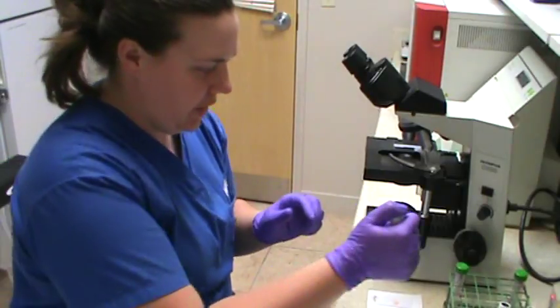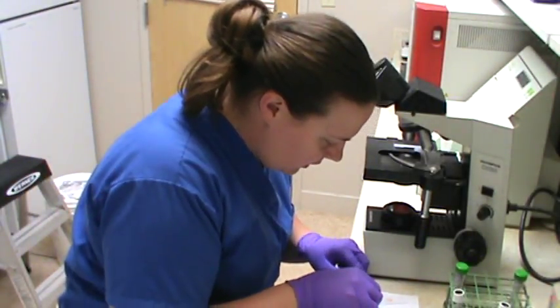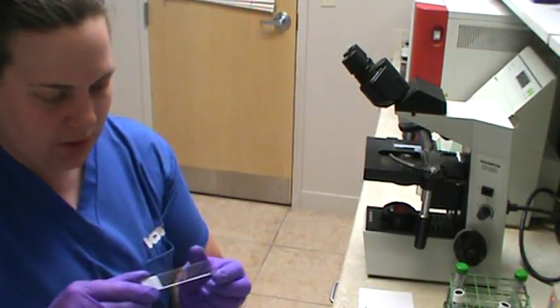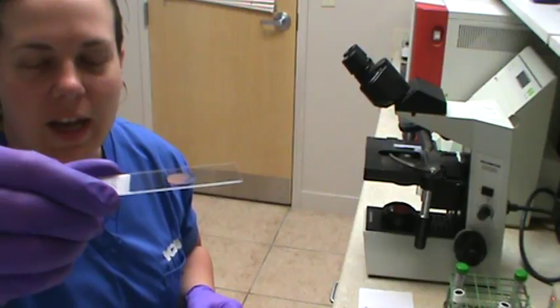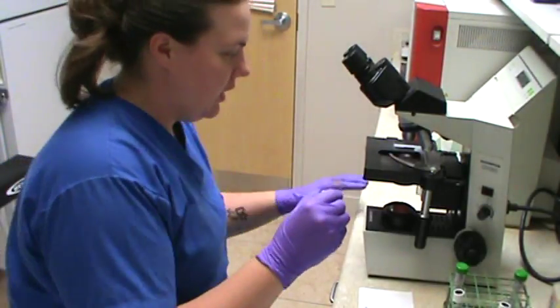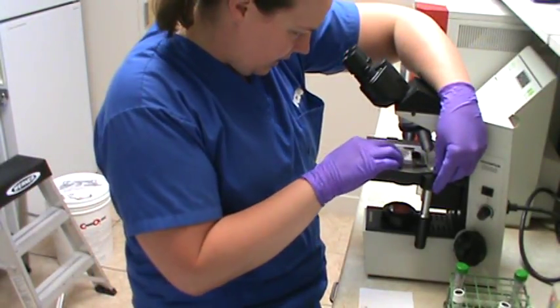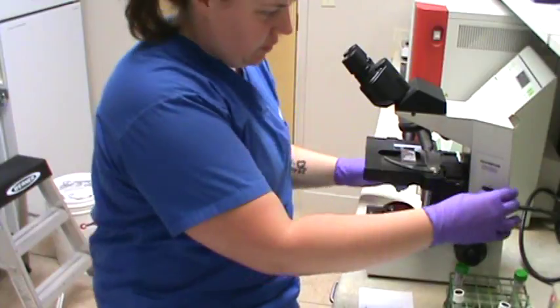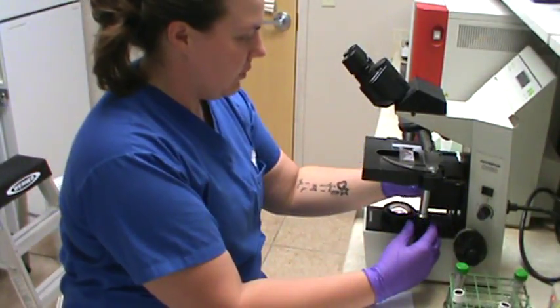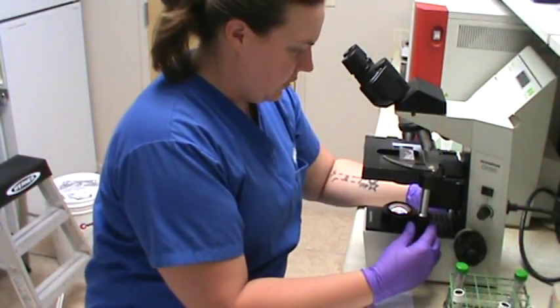Okay, so that was our major tube. I threw my pipette in the garbage. And again, I put a drop on the major slide. Even looking at it macroscopically, still not seeing any agglutination. So we're just going to go ahead, put this on our slide. And we're going to take a look. We're going to put on our light and take a look underneath the 4-time lens just to see microscopically if we see any agglutination at all.